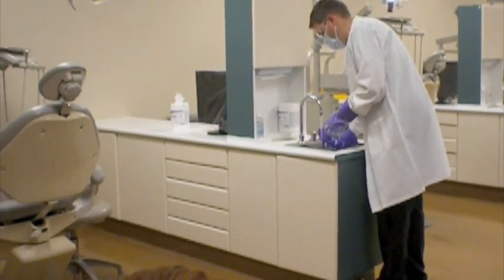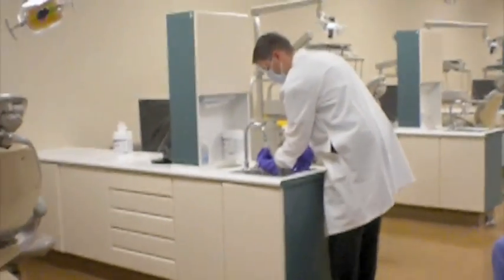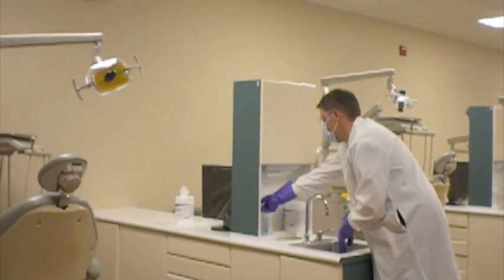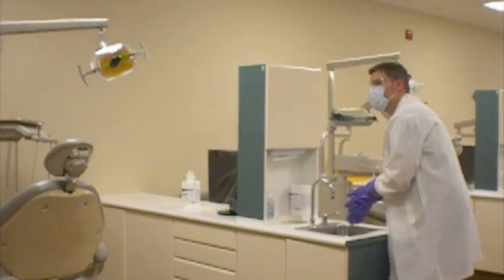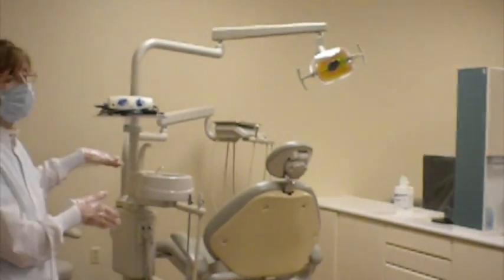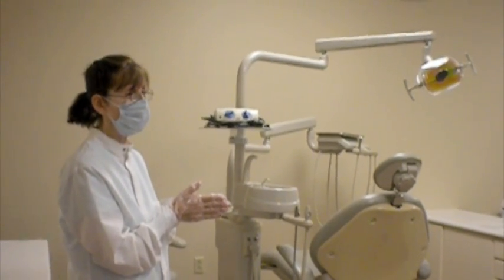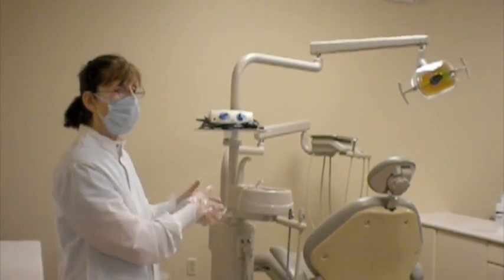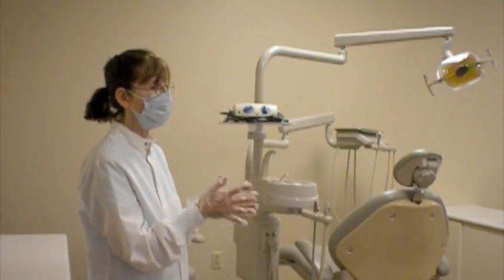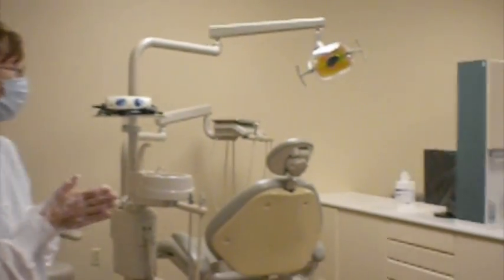So that's the top surface completed. So you've completed your top, you would wash your gloves, all right, regardless. The minute he has finished in that cuspidor, he's going to go immediately to the sink, discard that wipe, and wash utility gloves, 2 20-second consecutive wash rinses. The item that was on the floor, we just picked up at that point in time because it made sense in the sequence to discard and wash along at that same time.